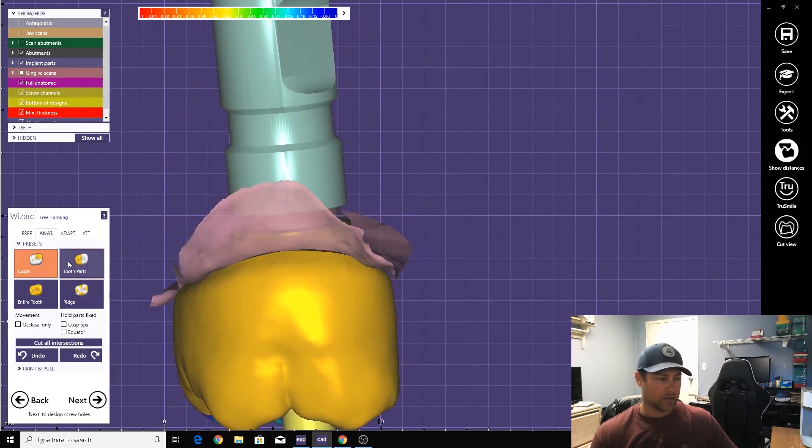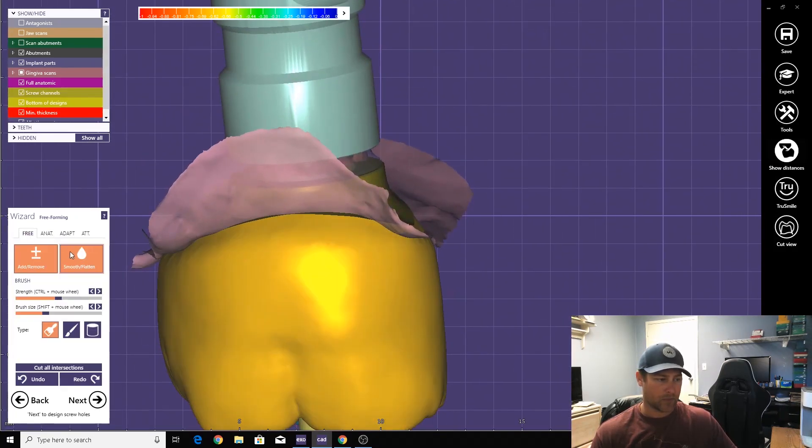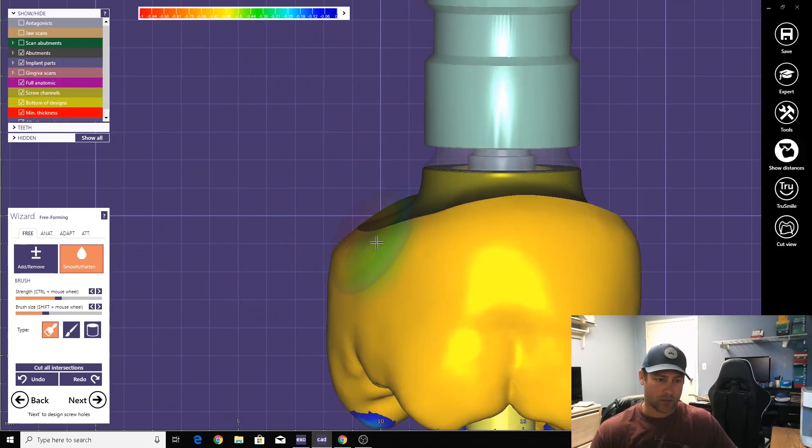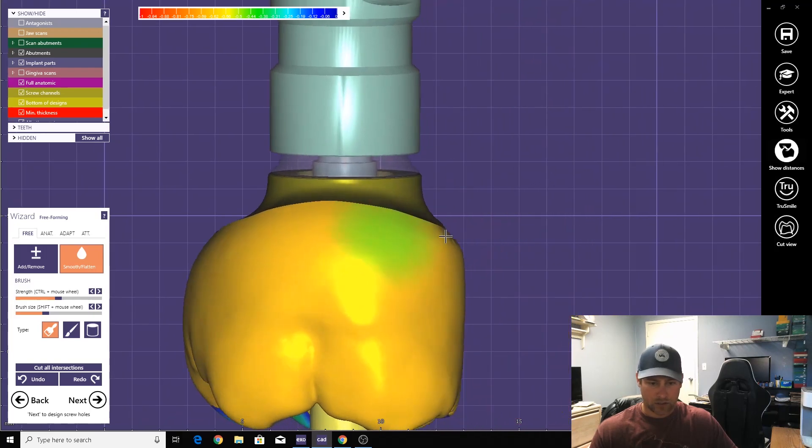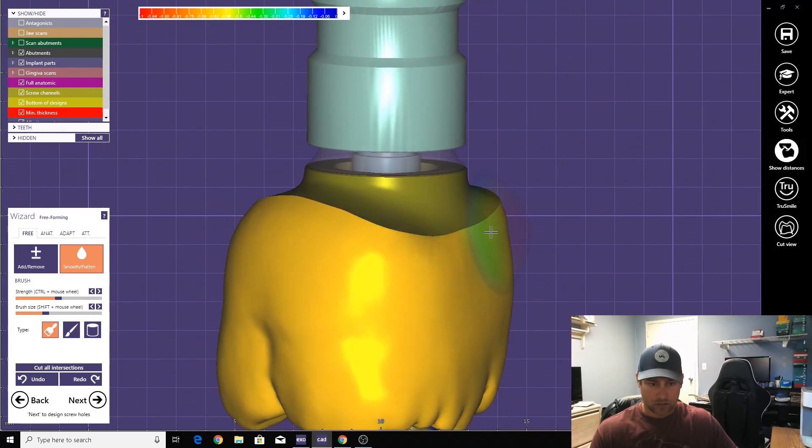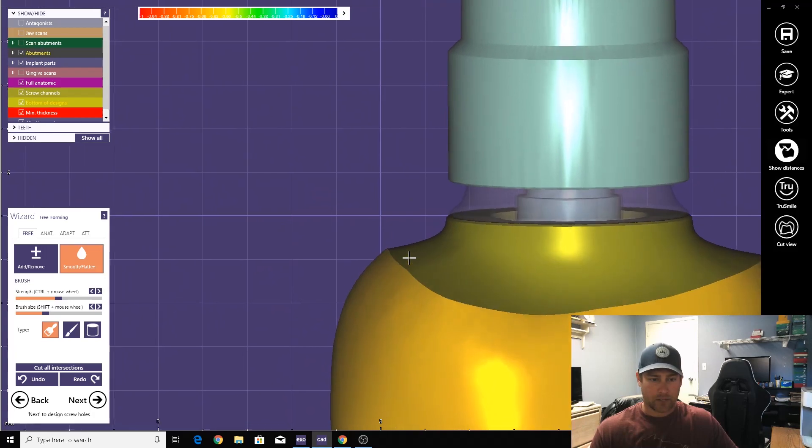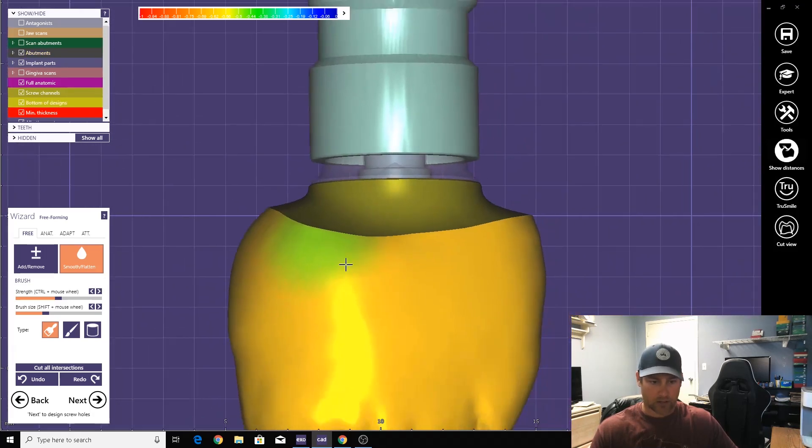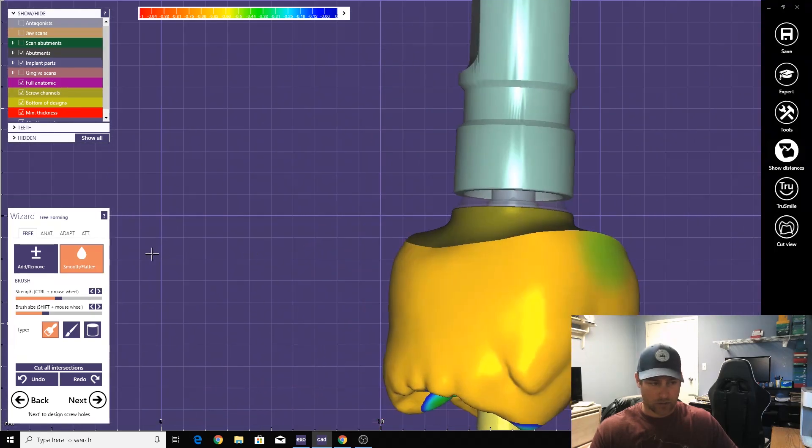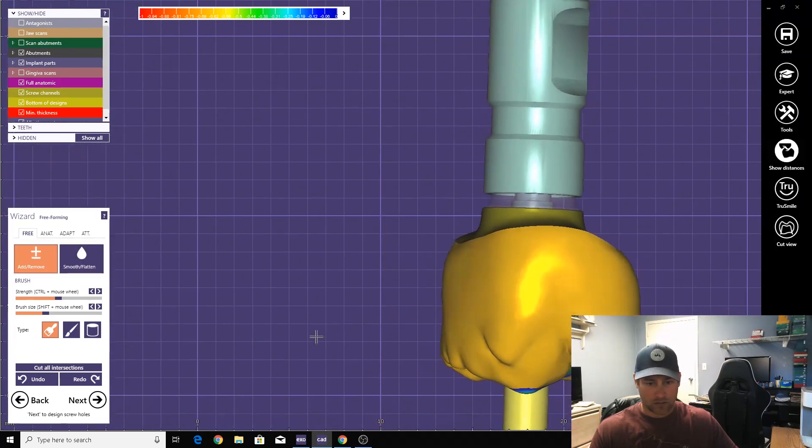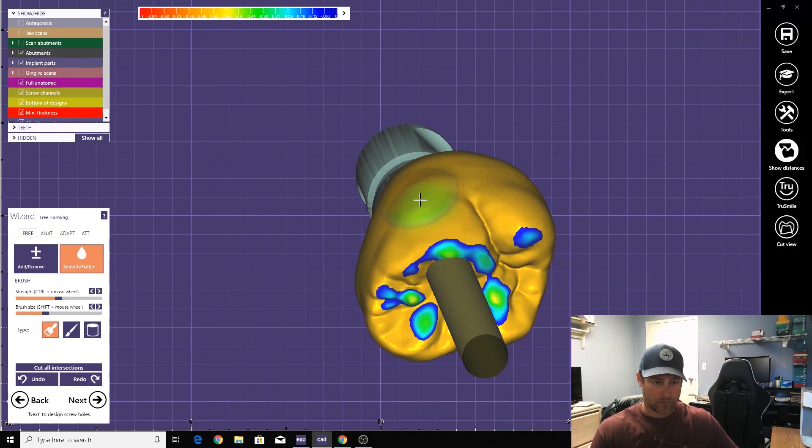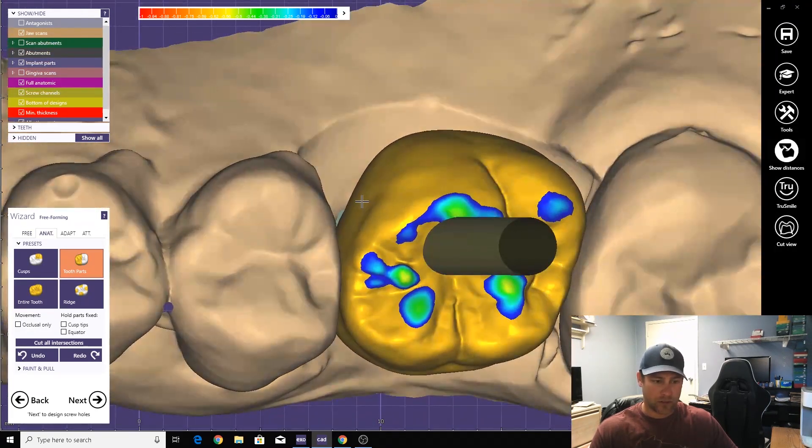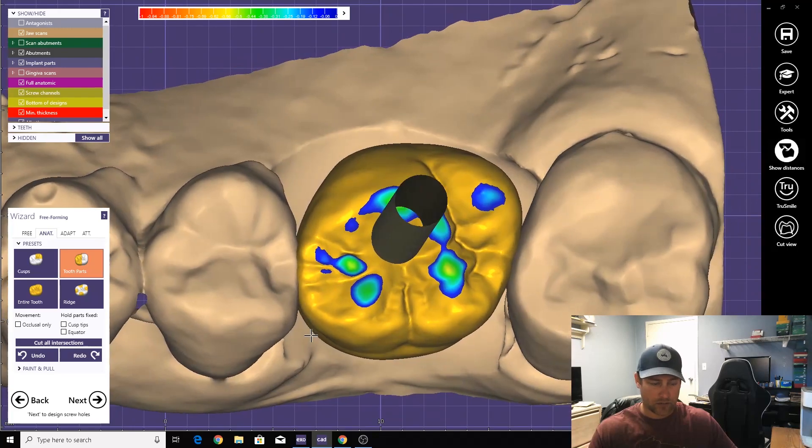All right, so let's smooth around. Smooth around here. Get rid of this, we don't need that anymore. Make this nice and clean. See, now if I hadn't made that thing zero, this margin line, there would be like this big old lip right here, and you want to just go ahead and get rid of that.